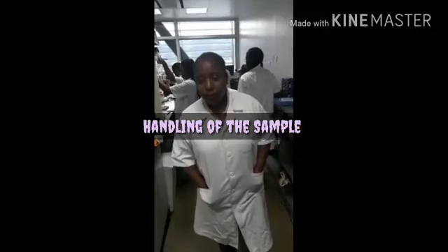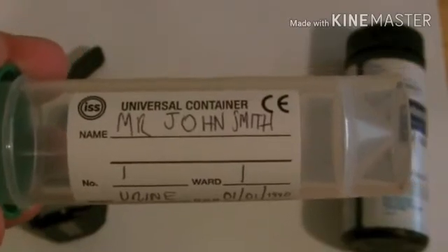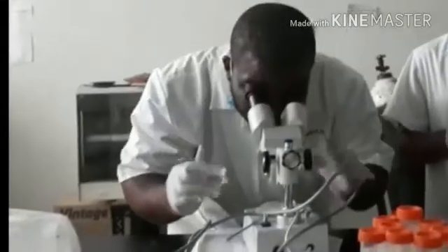Handling of the sample. Sample should be collected in a sterile container and labeled with patient name and other important information on the bottle and not on the lid. A sterile syringe should be used to remove some of the urine from the container and place it onto the dipstick. This ensures that the specimen will remain untouched, so it can be sent to the lab if further tests are needed.